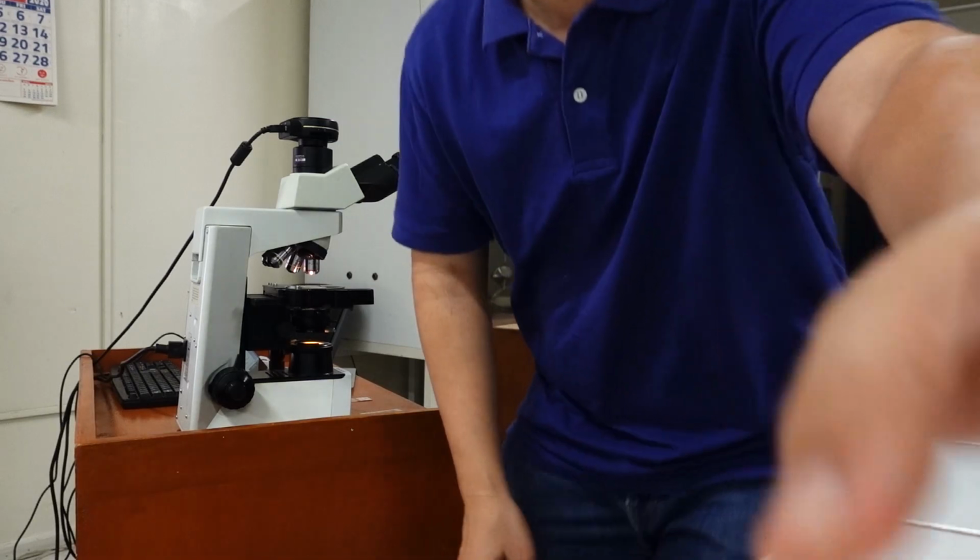We have 4 slides for today, starting with slide 111, that is chronic diverticulitis. We have slide 105 with Crohn's disease, slide 109 with ulcerative colitis, and our last slide will be slide 106, that is ischemic bowel disease or infarction of the bowel. Okay, so let's start.